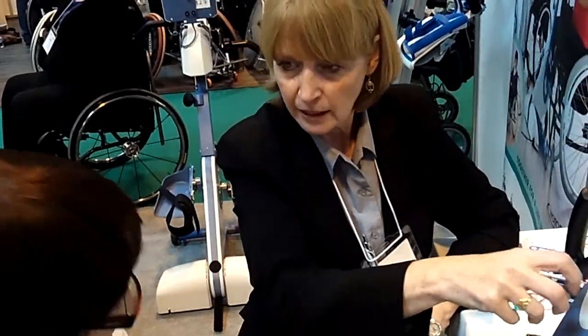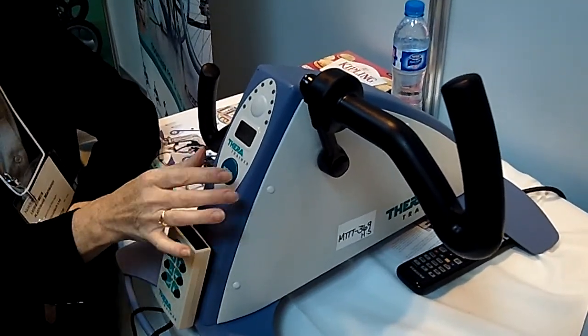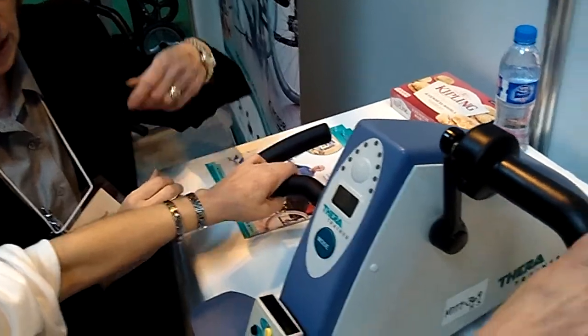What it is, there's a little button here. It turns and that increases the resistance. So it's not electronic like here — it's on a little thing on there. But basically same idea then? So the handles? Exactly the same.